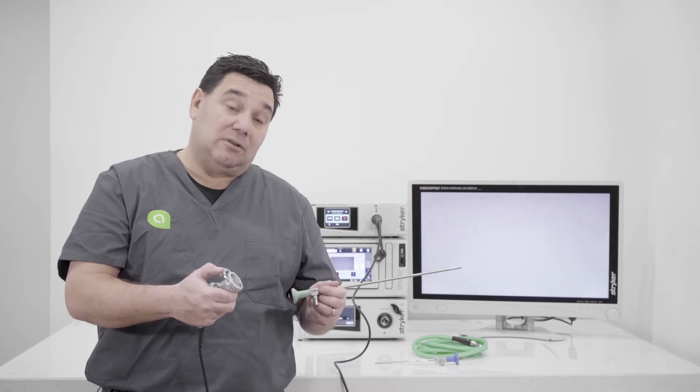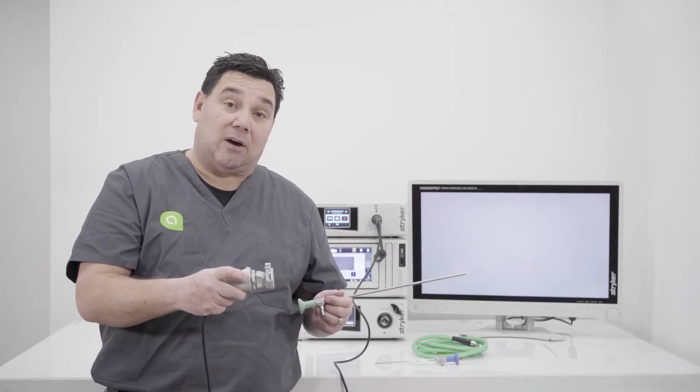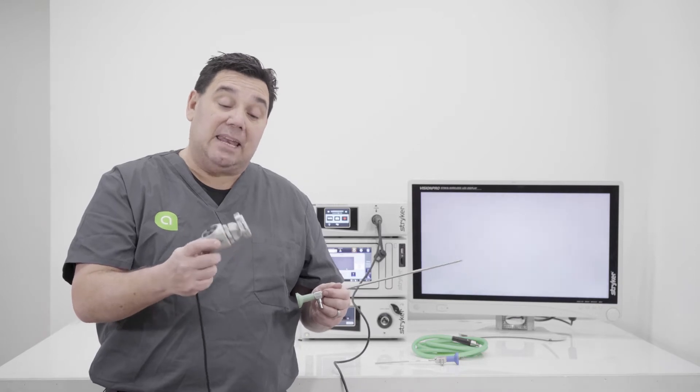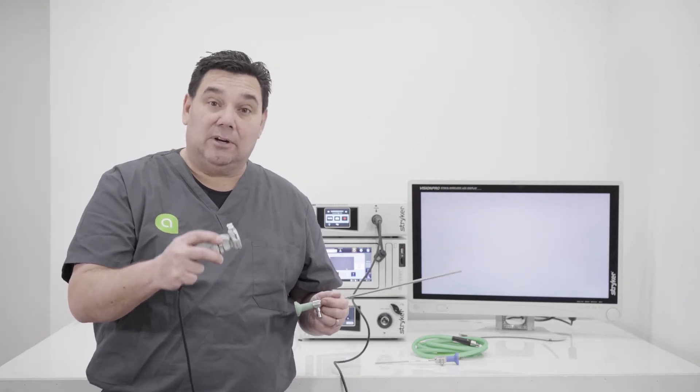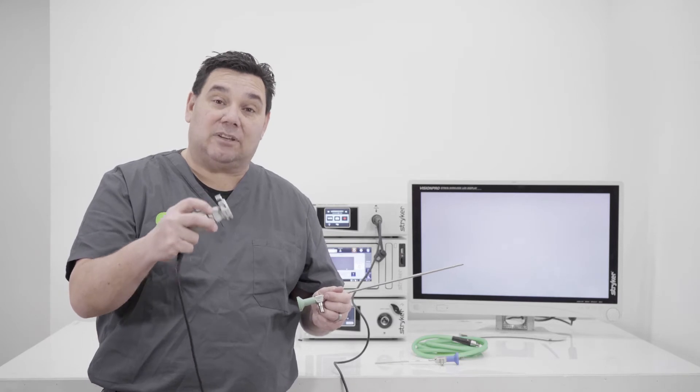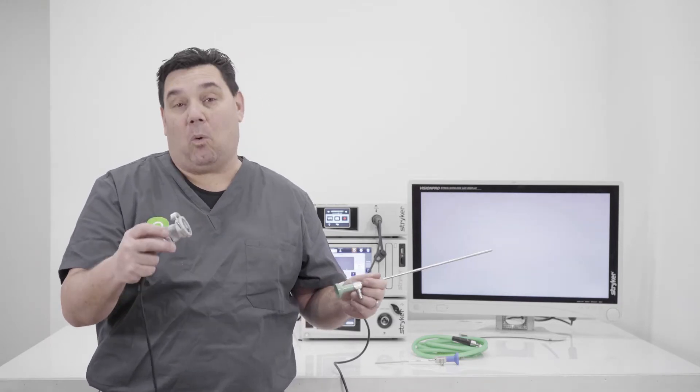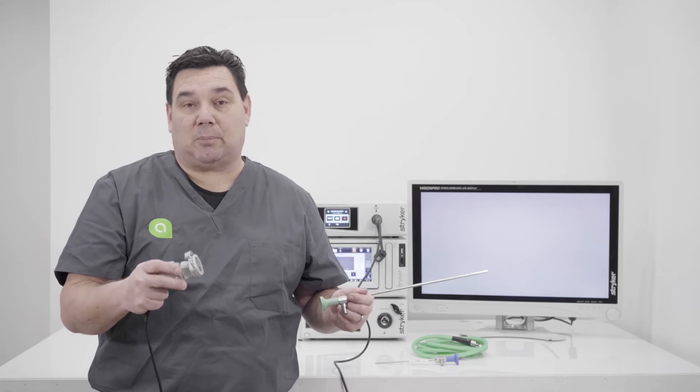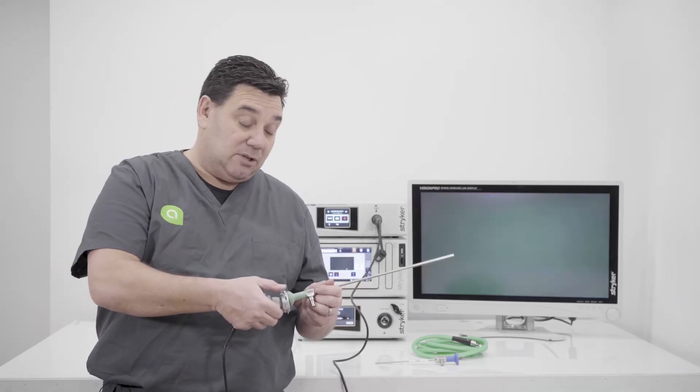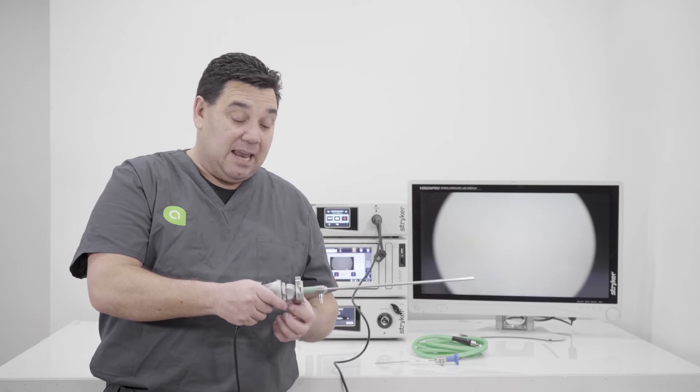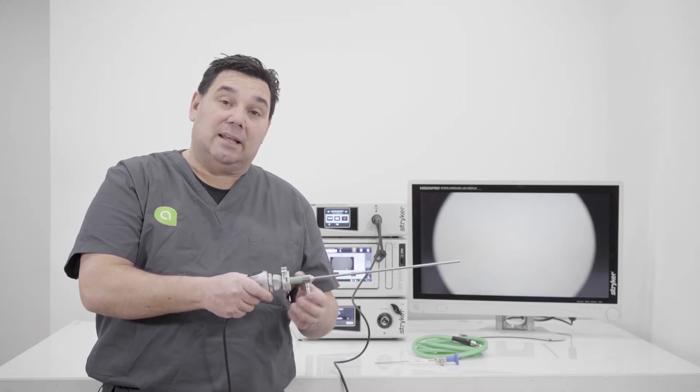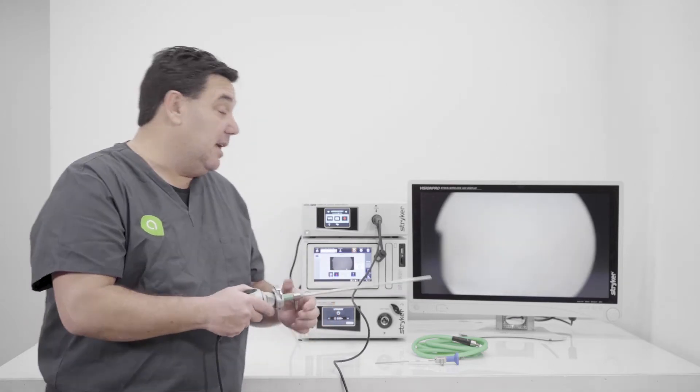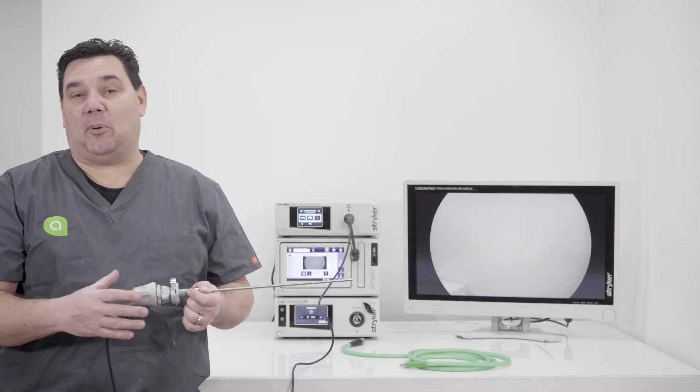Basically what you're going to do is you're going to use the camera and the camera itself is going to be the body. And then on the camera is going to be what's called the coupler. The coupler allows it to hook to the actual laparoscope or arthroscope, depending on what type of procedure you're doing. So basically what you would do is then hook that in. And then your focus ring is right here next to the end where you plugged it in.